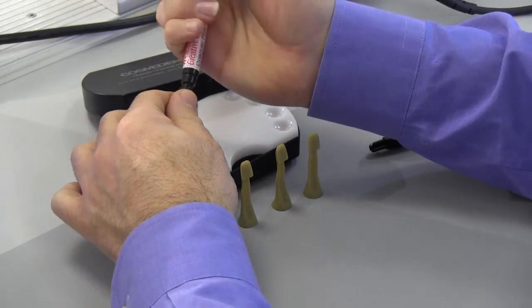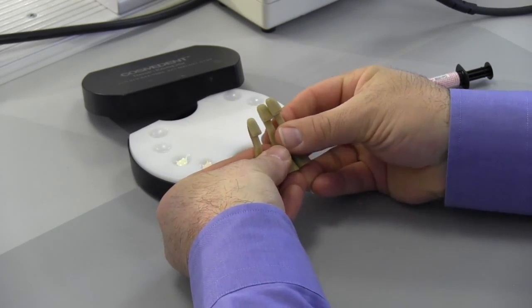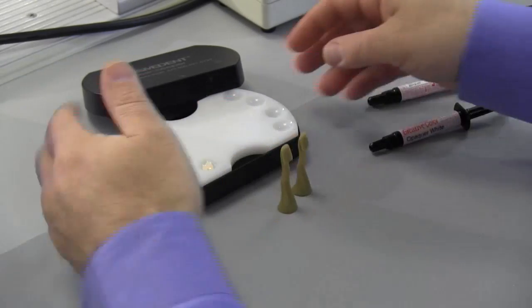Next we're going to take our shade guide formers. We have three shade guide formers that are all C4-based, and we're going to use two of those and hold one out as our control.